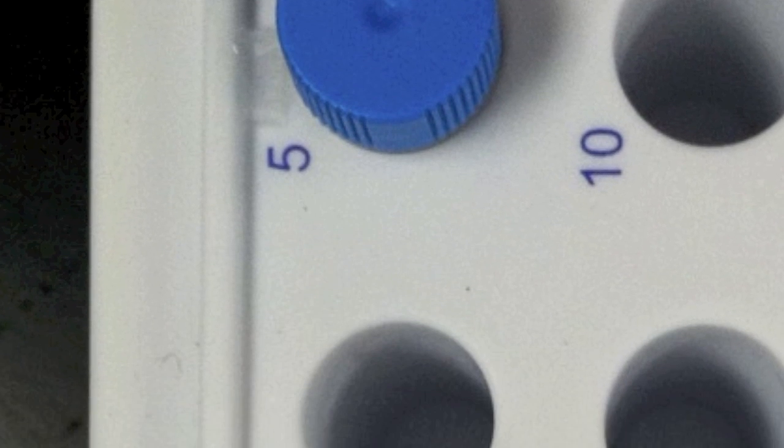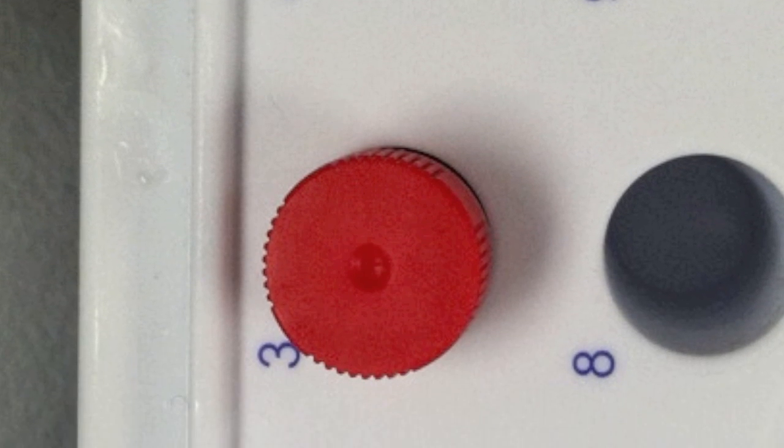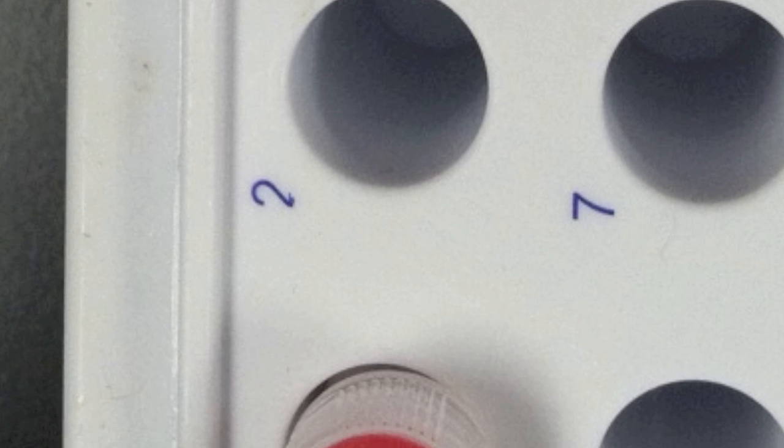We have placed an amplification reagent tube, blue cap, and enzyme reagent tube, red cap, and a 2.0 dilution tube prefilled with dilution buffer in a cooling block.